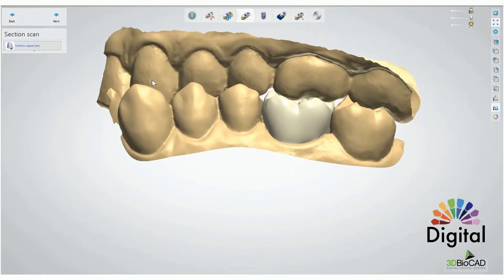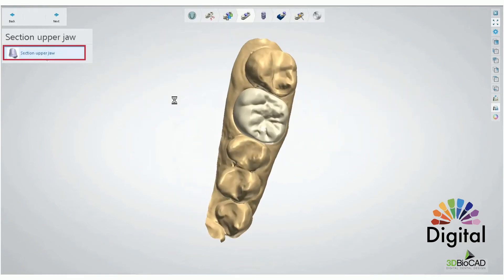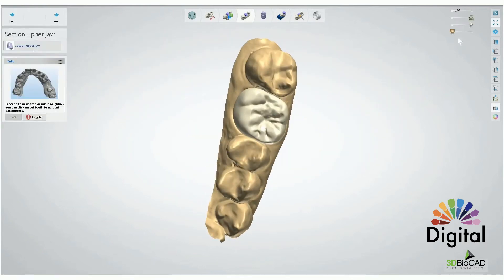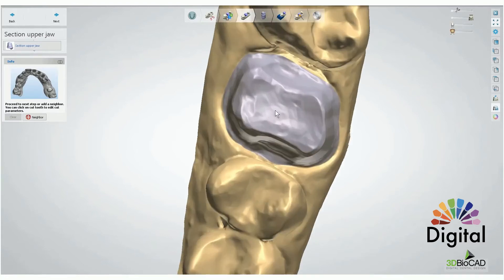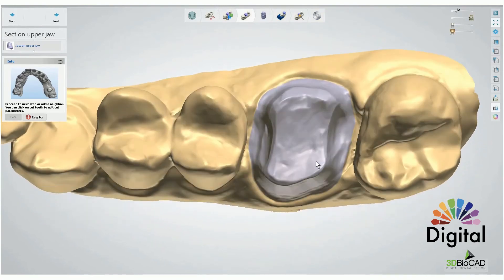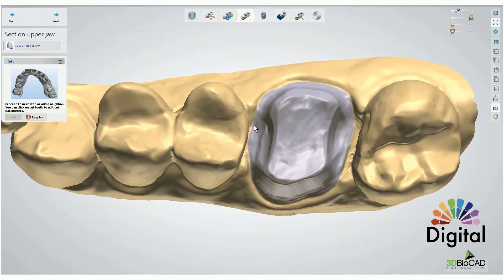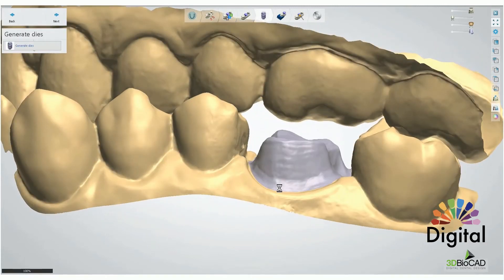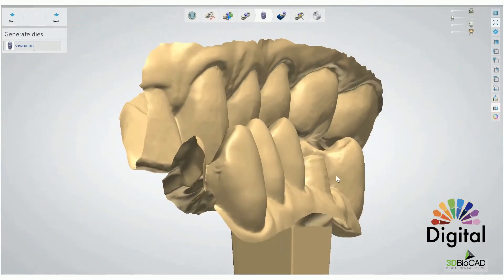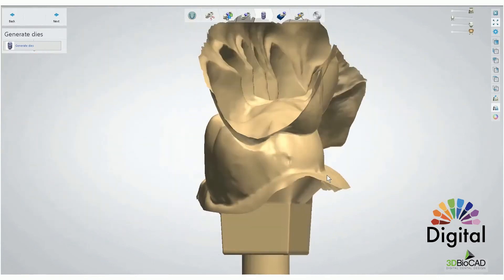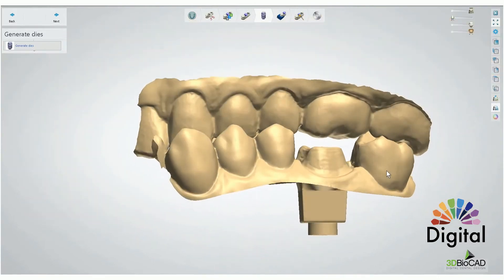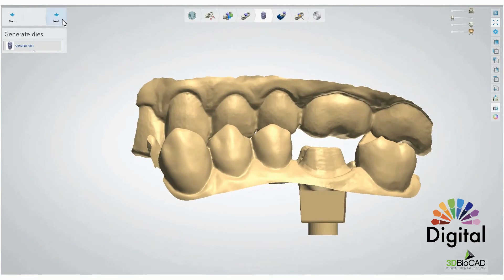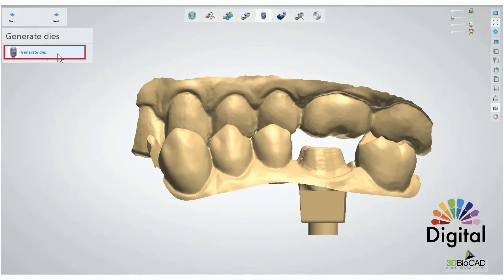Section of the Scan — let's see what happens if I click Sections Upper Jaw. The section line is already done from when you did the crown design — we remember the segmentation line. So we don't have to touch this, we can just go next. With that purple segmentation, the software creates the die. Just wait for generate time and in Generate Die you can go next.